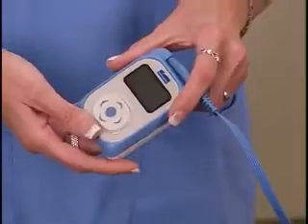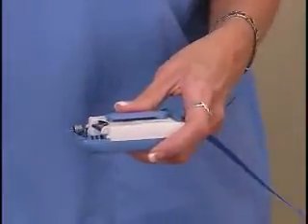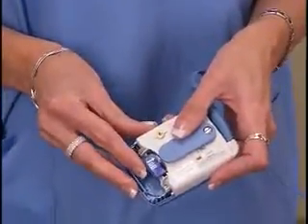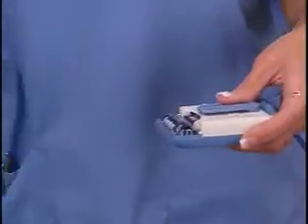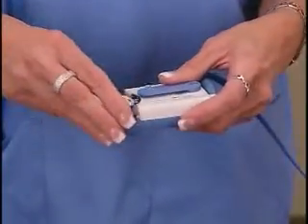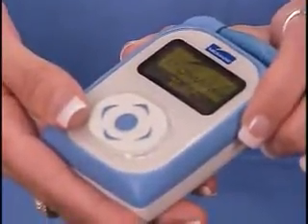Next are the steps to follow to set up the IQholter recorder. Hold the Holter recorder, turn it over, and carefully remove the battery door. Make sure the SD card is in place. When the SD card is in place, insert a new battery. Once the battery is in place, replace the battery door. Once the new battery is in place, the recorder will beep once and the display will light up.